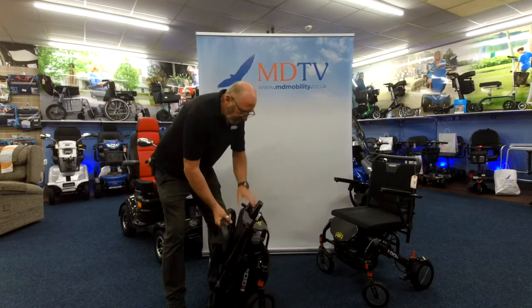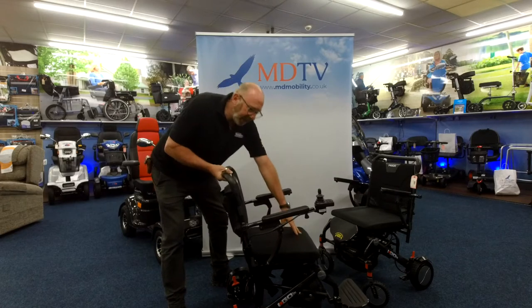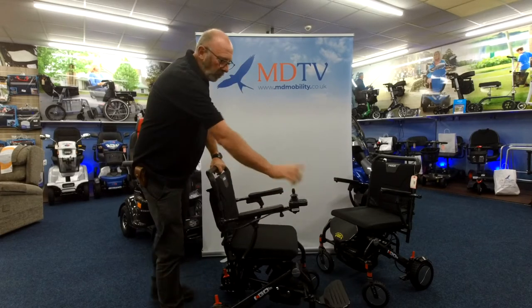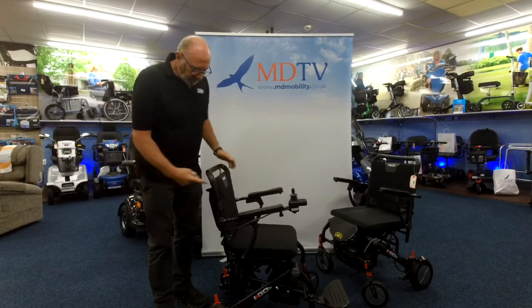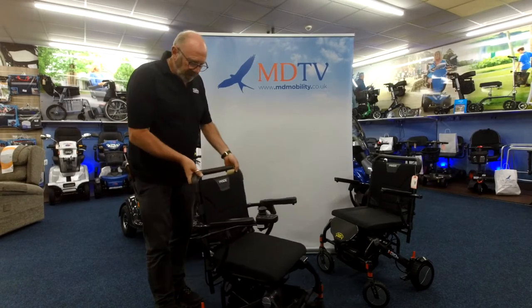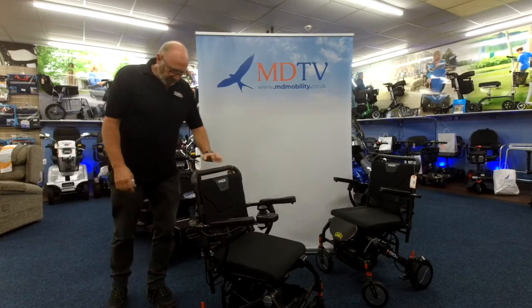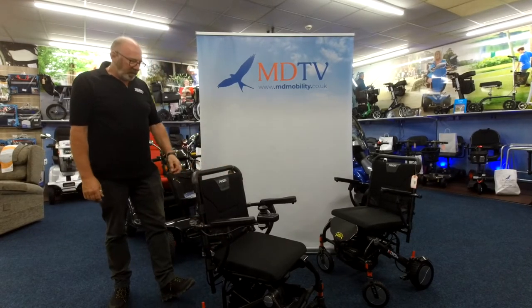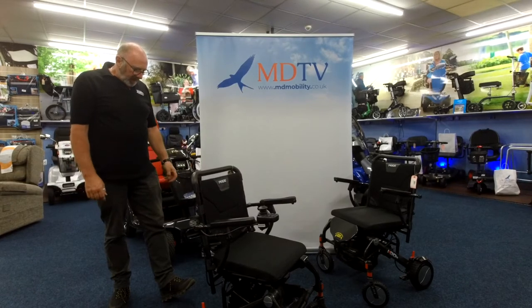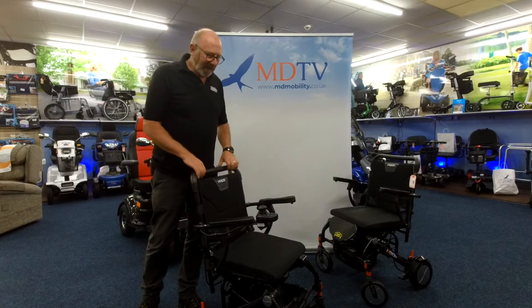There have been one or two subtle improvements, which is why I carried this one in. It opens just the same as it always did — straight up, let it click, press your button, wait for it to bleep and off you go. They've put round bars on the back with some nice rubber bits. There are also one or two subtle little bits and pieces that just make them better and probably slightly lighter.